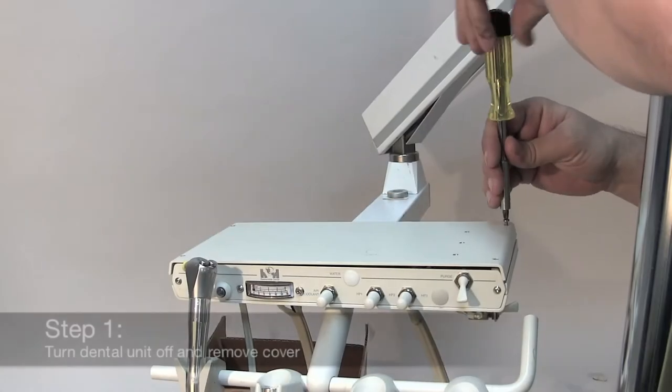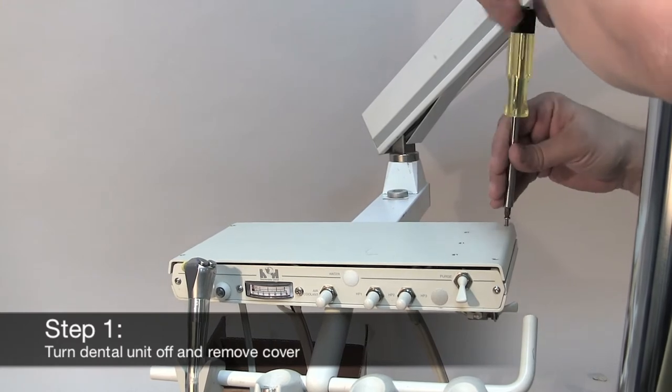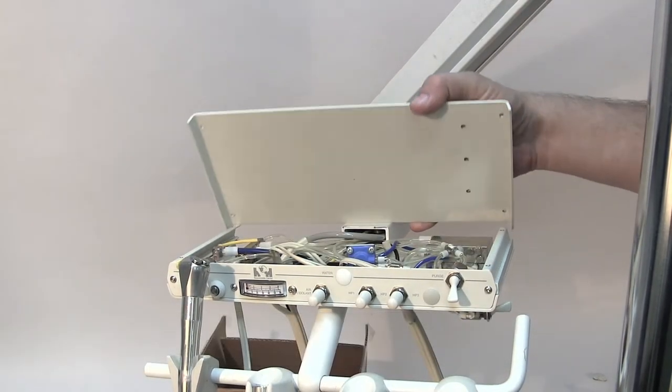So let's get started. First turn off the unit and depending on your unit, lift or remove your cover to get access to the inside.